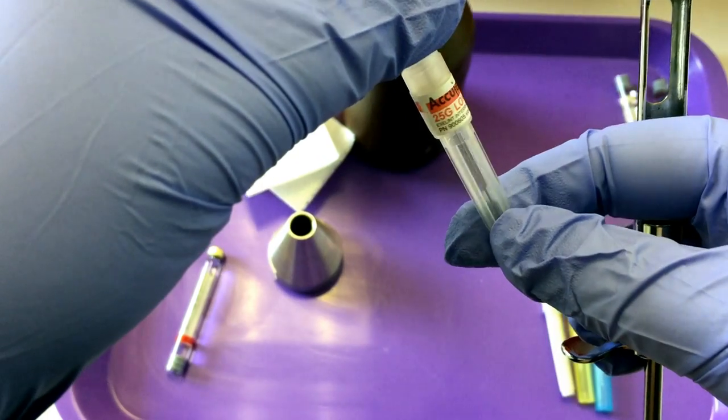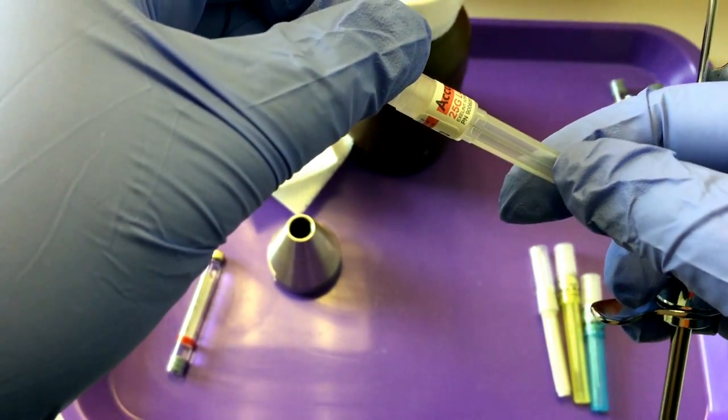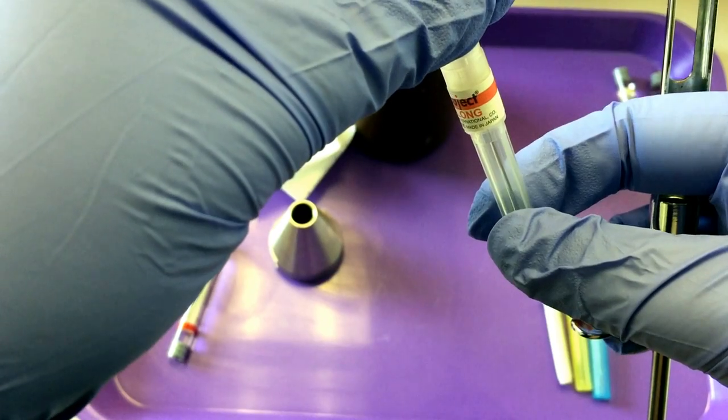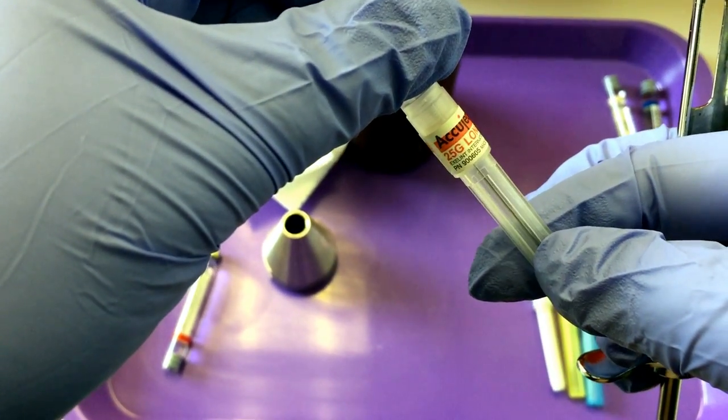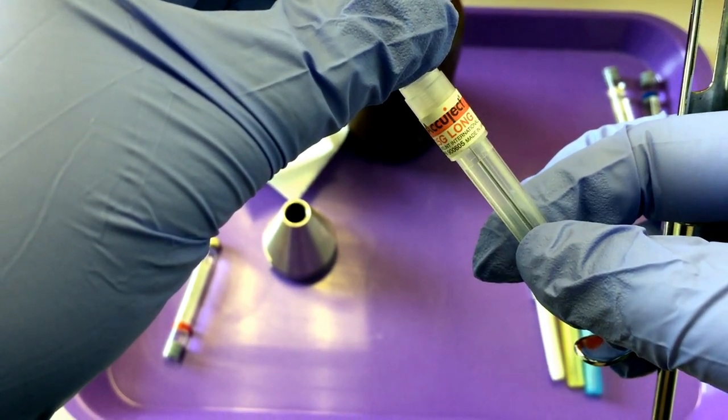The lumen is the hollow part of the needle that allows liquid to go from the carpule and be injected into the patient. This is a 25-gauge long needle.